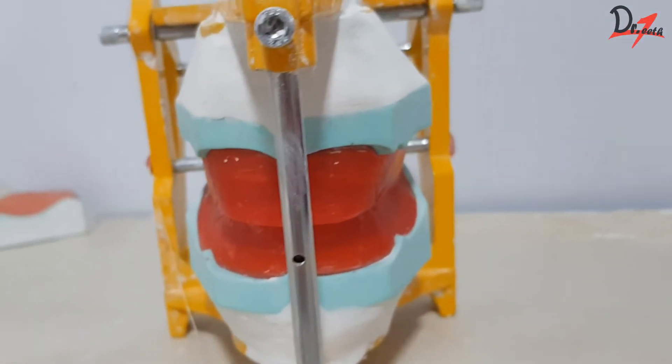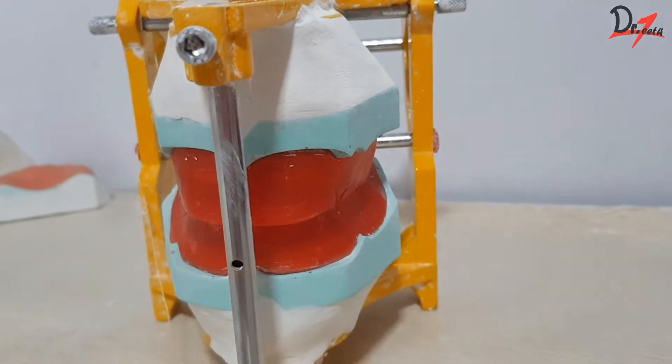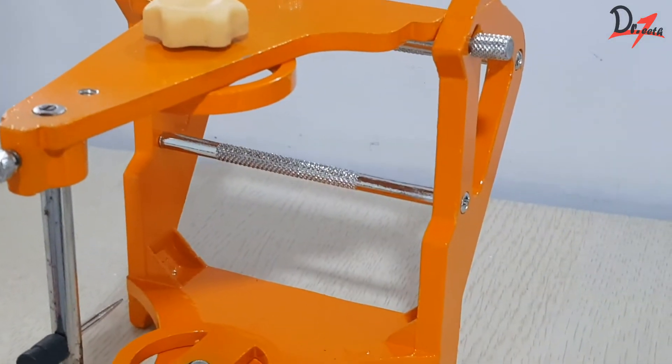Hello everyone, Asalaamu alaikum. In this video, we are going to see how to mount the cast in a mean value articulator.